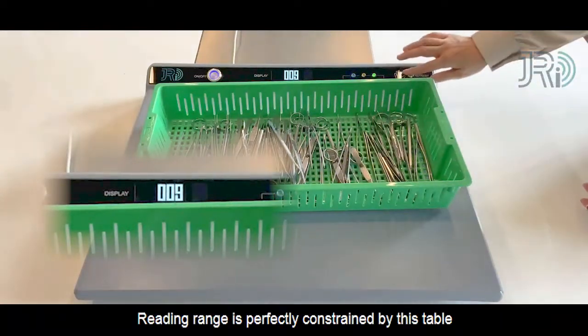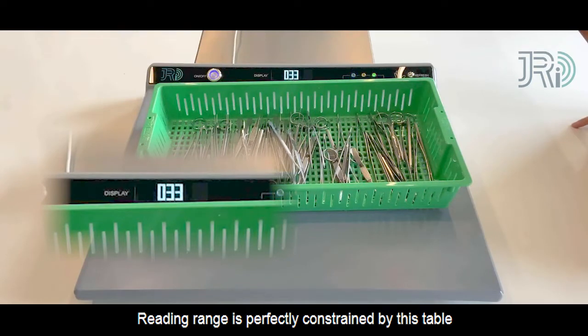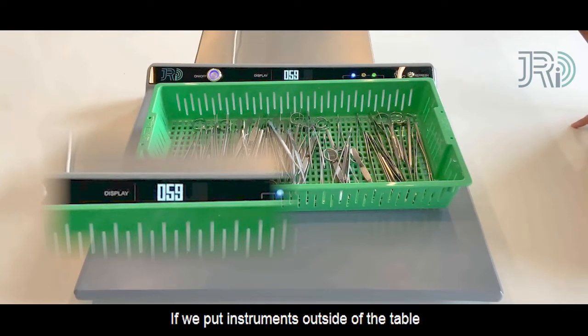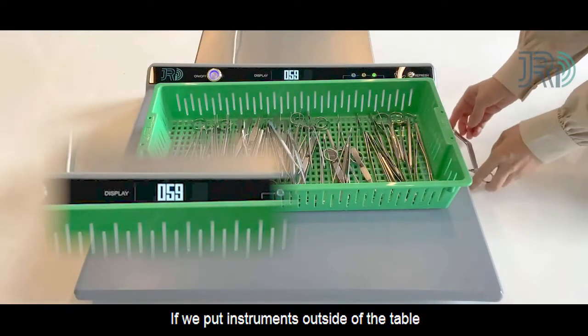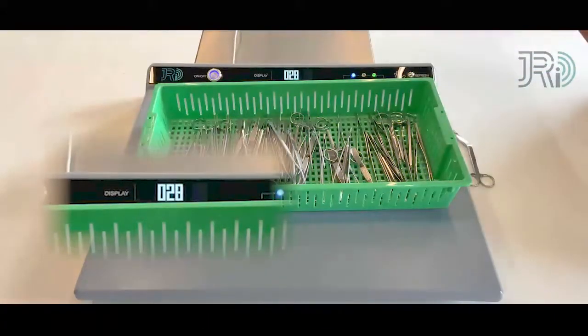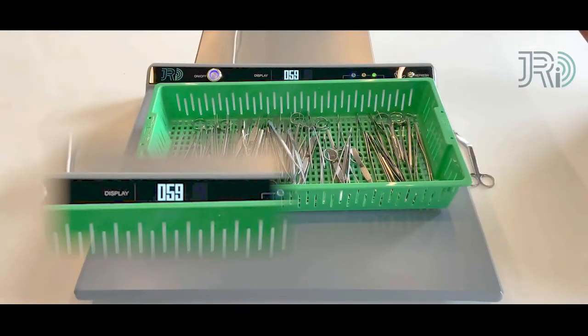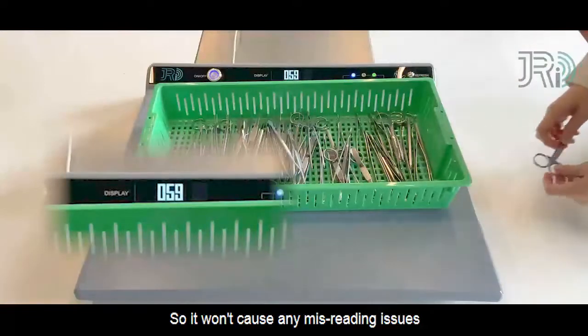Reading range is perfectly constrained by this table. That is to say, if we put instruments outside of the table, it won't read. So, it won't cause any misreading issues.